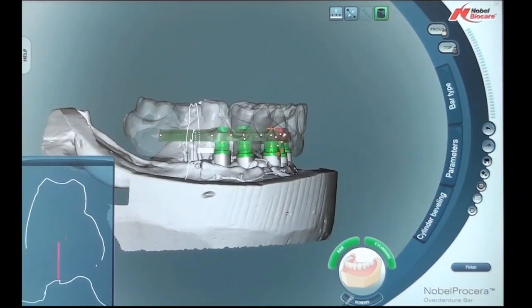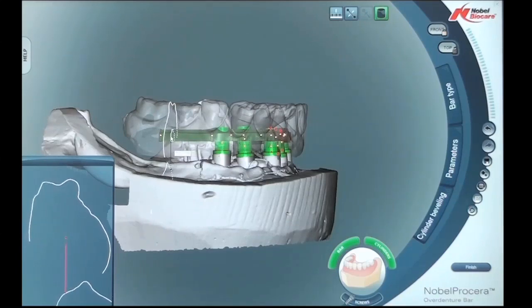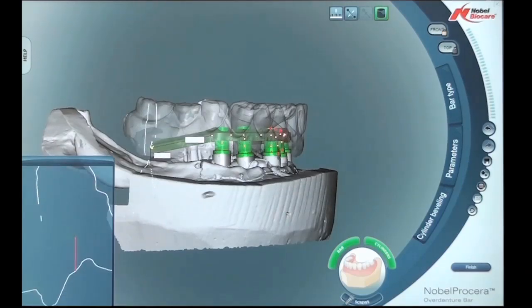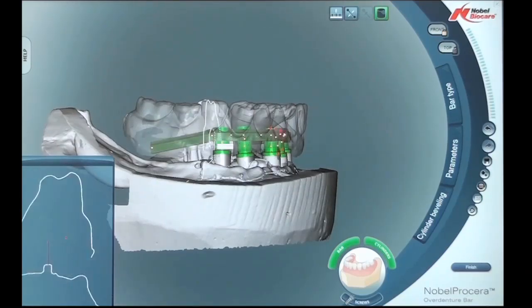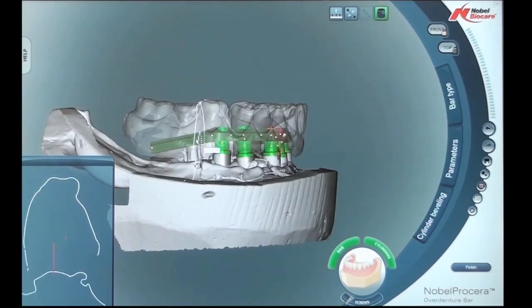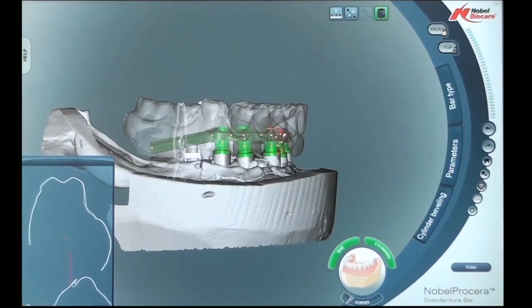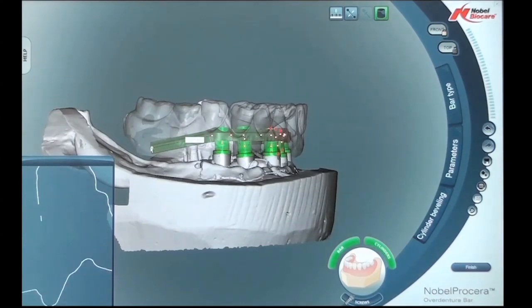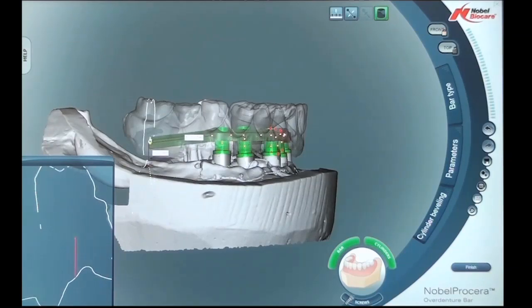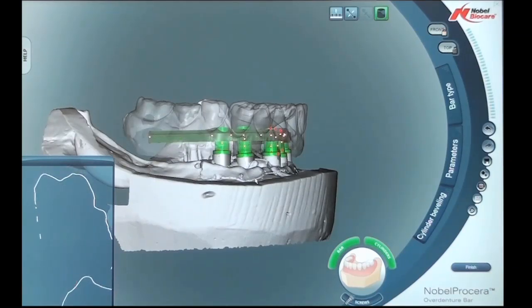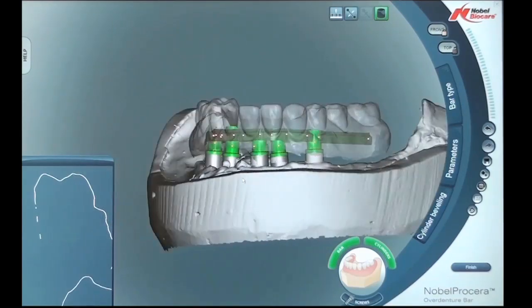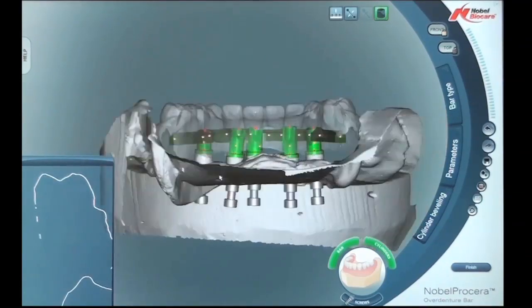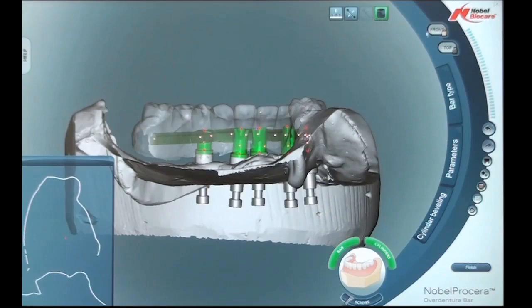Scanning the distal segment, I'm measuring the space from under the bar to the top of the tissue. I purposely lowered the distal segment of this bar to show how the different measurements of the scanning are being done. We can then simply bring the bar back up to the correct height, scan and measure it. We can manipulate the bar in any direction we want to look at any direction we need.